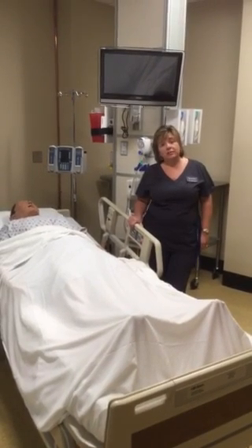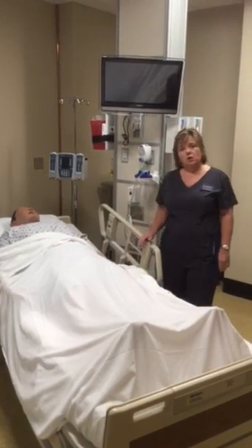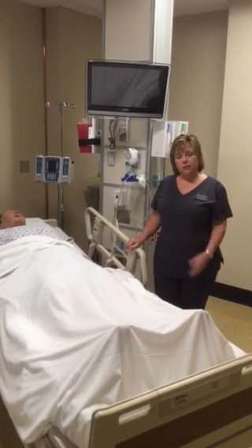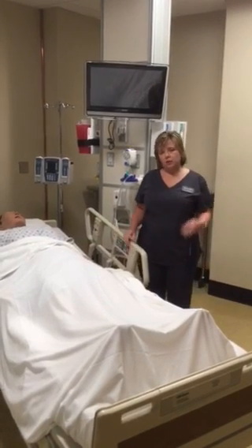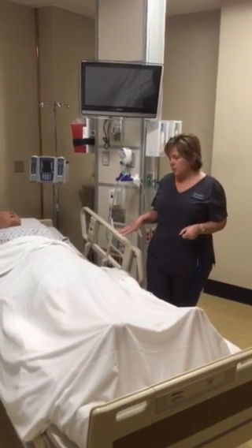Orientation to the high fidelity rooms and the equipment in them. All of the rooms are the same with the exception of the ORs. The 4 high fidelity rooms on this hallway are all the same with the same features. Your patient will either be on a stretcher, which is covered in a different video, or a hospital bed.